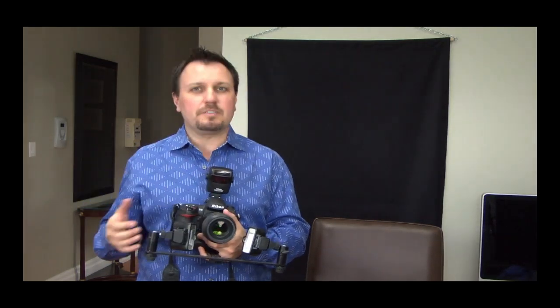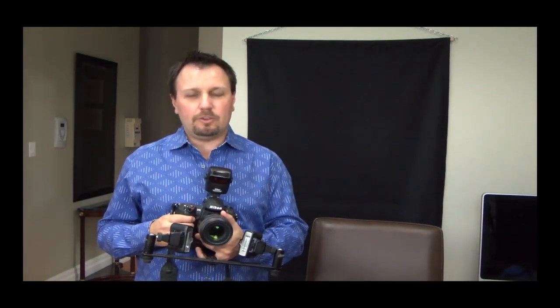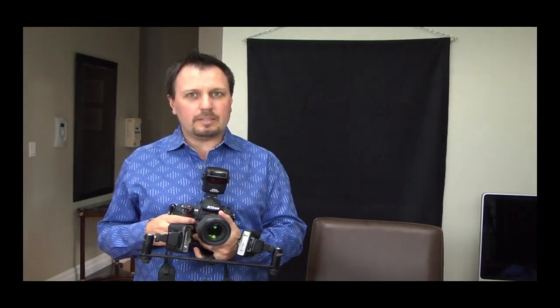That setup helps me achieve the types of images that you would see if you've been to one of my seminars. I'm going to show you some video clips that I've pulled from my DVD on digital photography for dentistry. It's basically a two-disc DVD and it's about two and a half hours long, and it walks you through step by step in a lot of detail how to take each image.